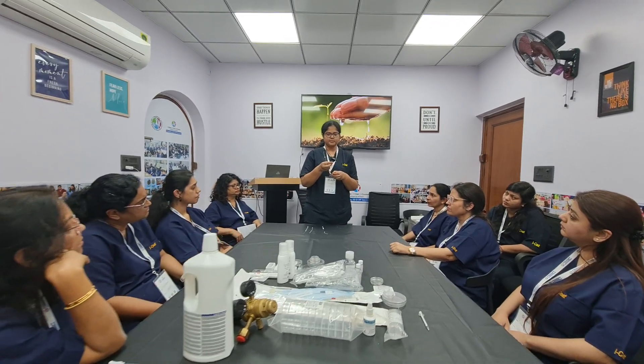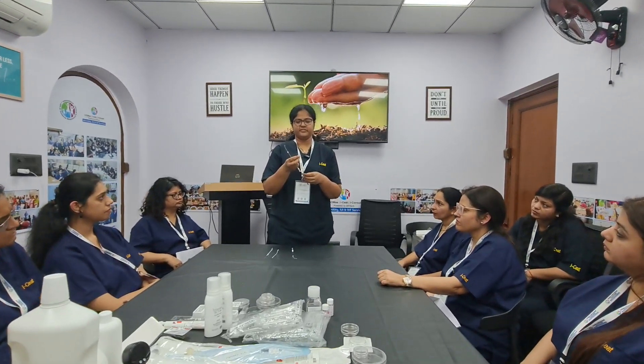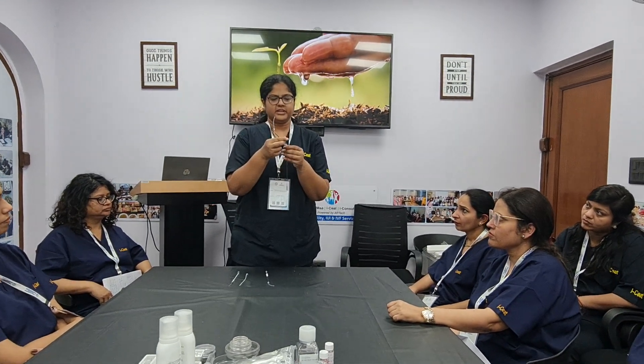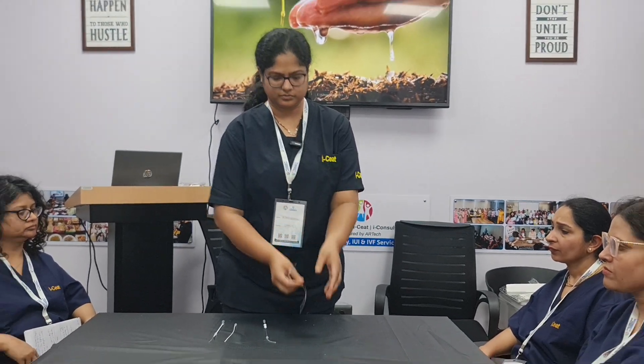The third type is another two-piece catheter, but the difference is that the tip of the inner catheter has a metal ring which is visible on USG. Thank you.